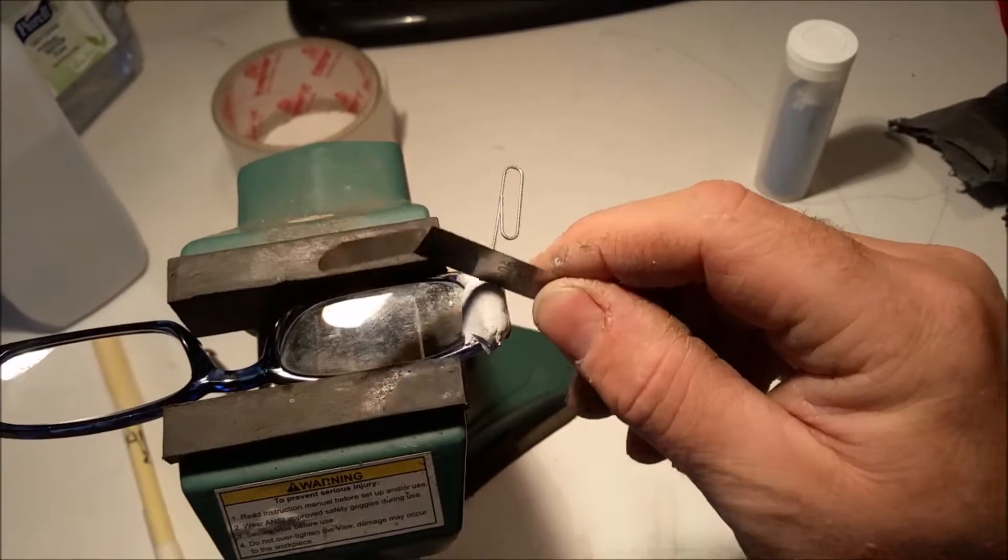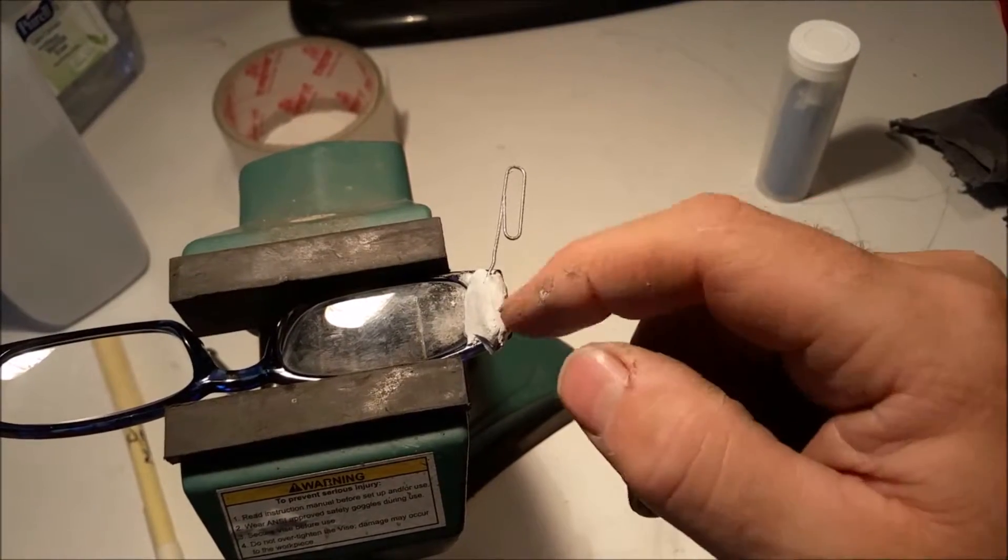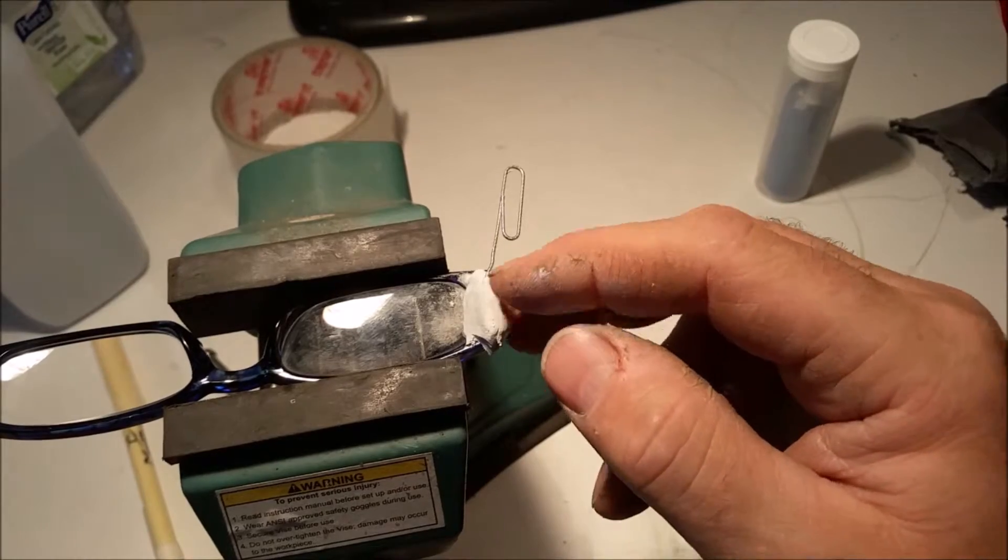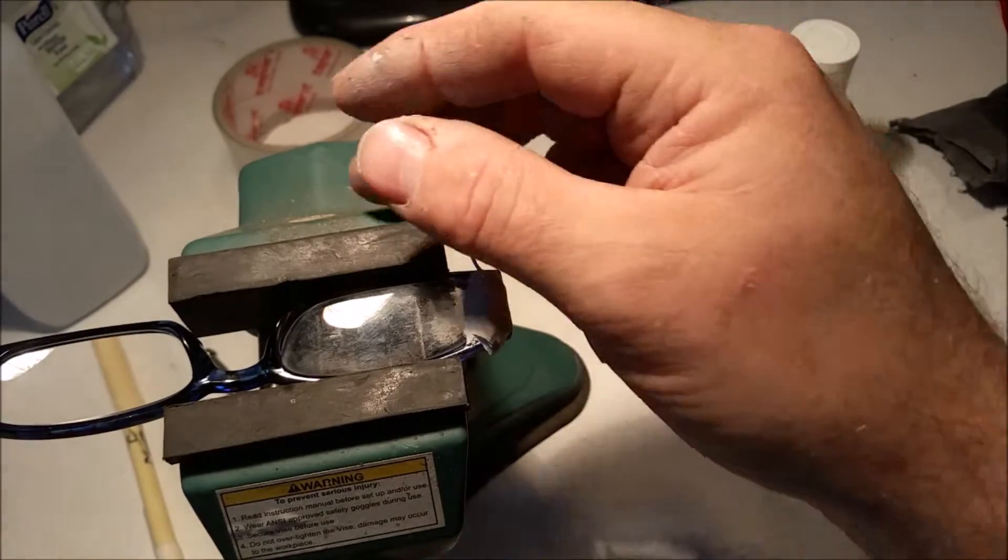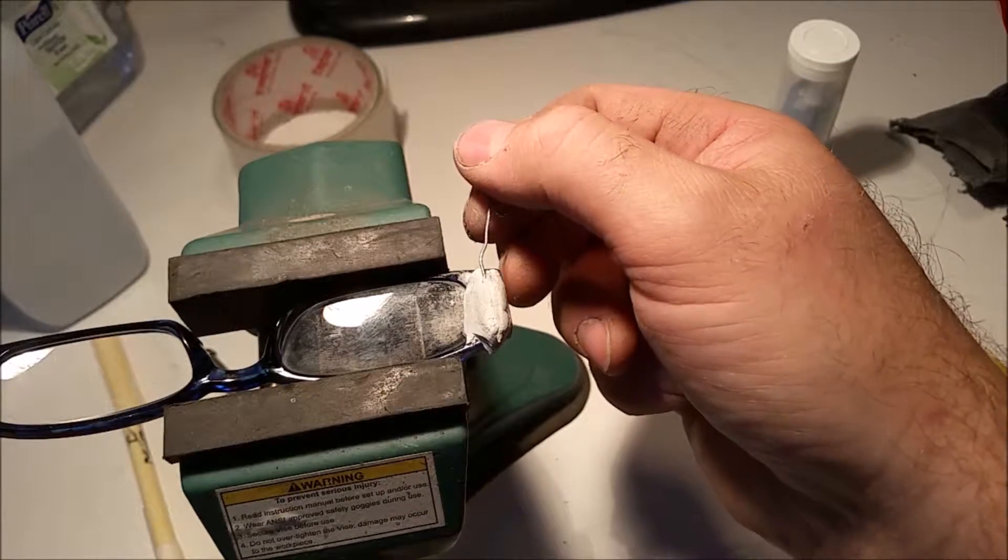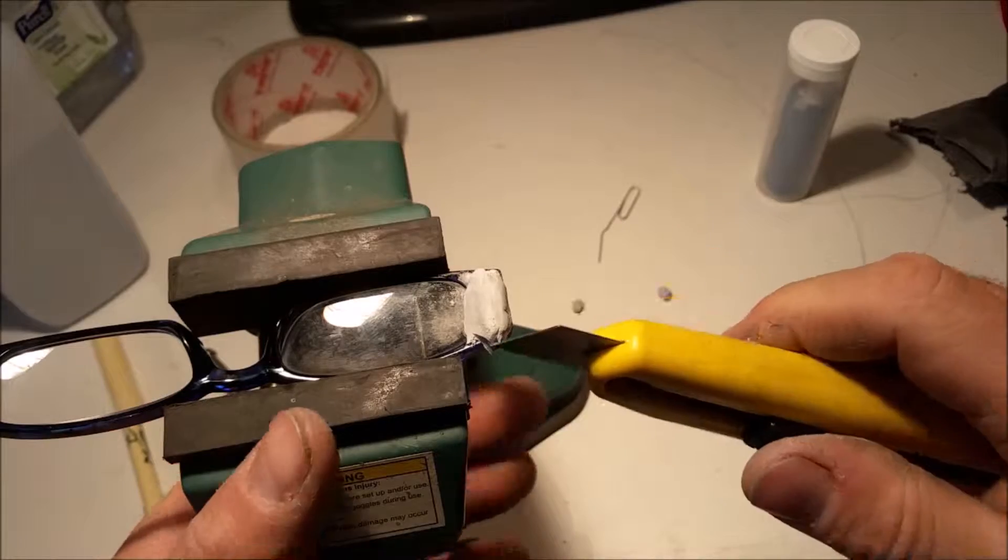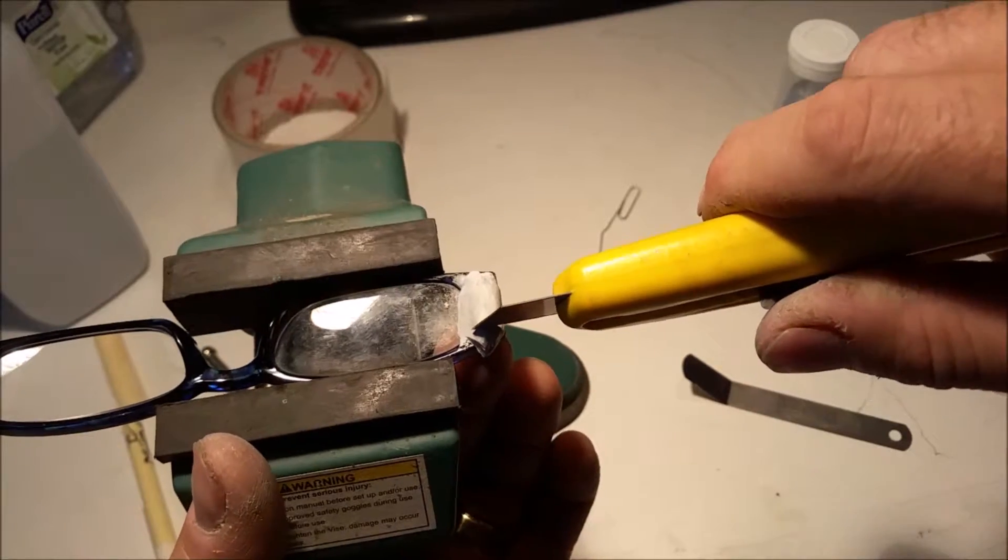Okay, it's been like 10 to 15 minutes. Dry. I guess you can start taking away what you don't need. Make sure you got this hole right there. Pull this out and start cutting away what you do not need.